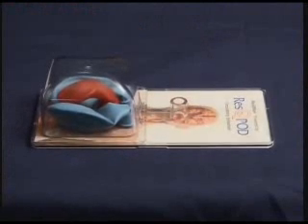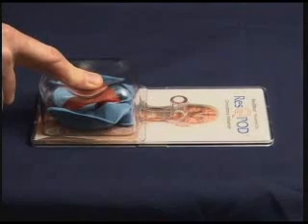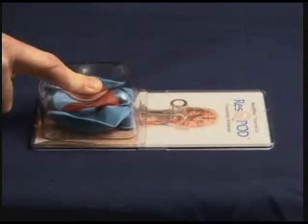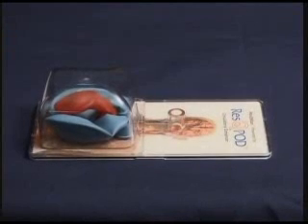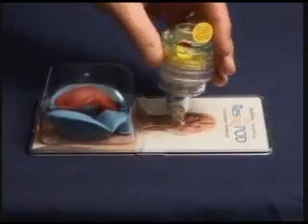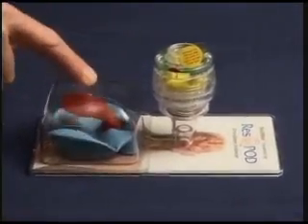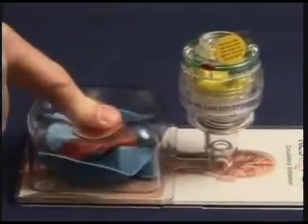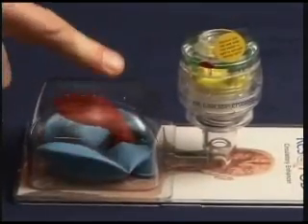To summarize, the Rescue Man demonstrator shows the physiology of CPR. Pushing down on the chest increases the pressure inside the thorax and squeezes the heart. Blood flows out of the heart to the brain and the rest of the body. When you let the chest wall recoil, blood flows back into the heart and air flows into the lungs. This system can be optimized by the Rescue Pod, which prevents air from rushing into the lungs during the recoil phase of CPR, thereby doubling blood flow back to the heart and to the brain.